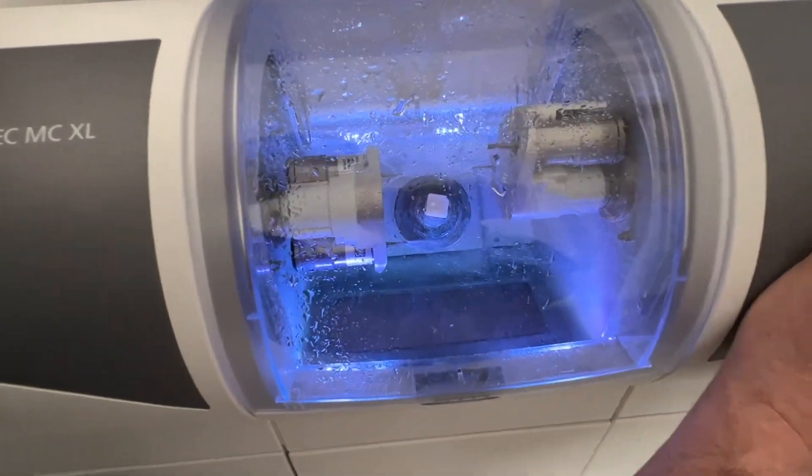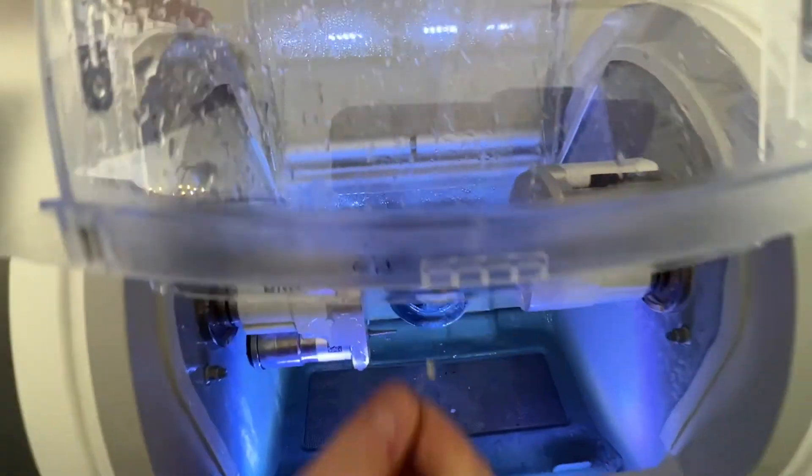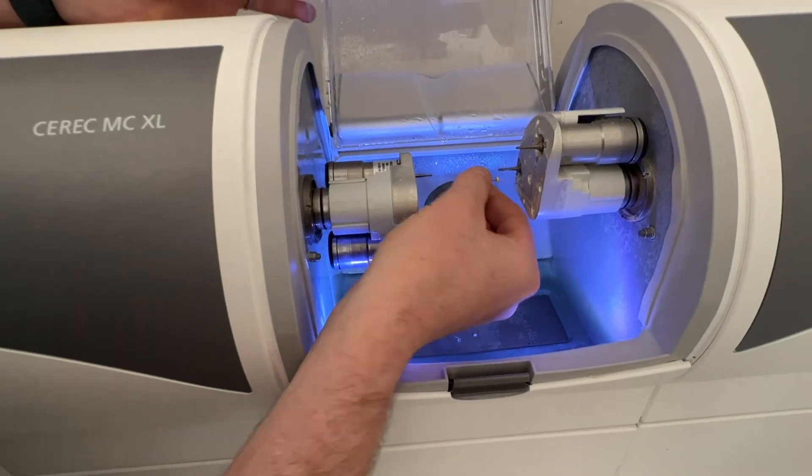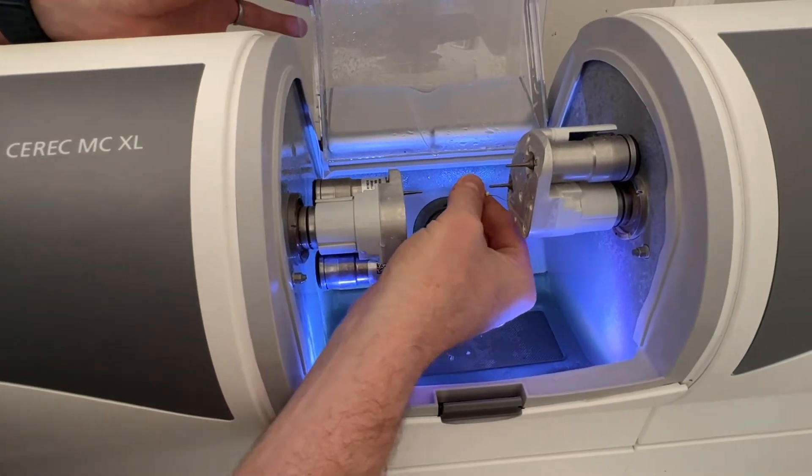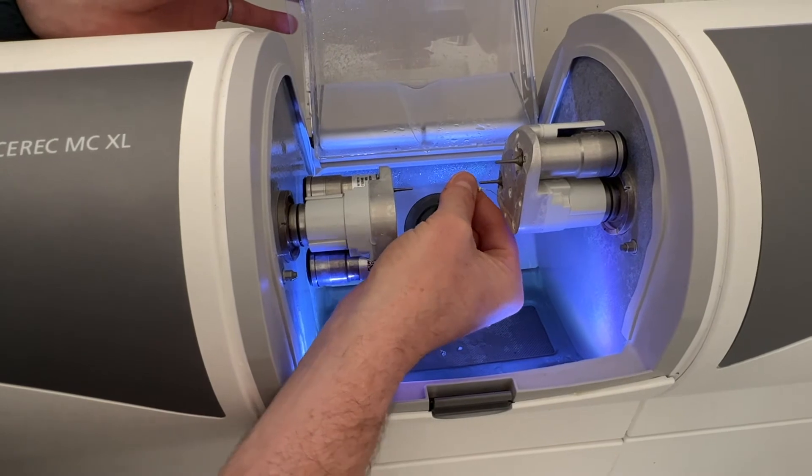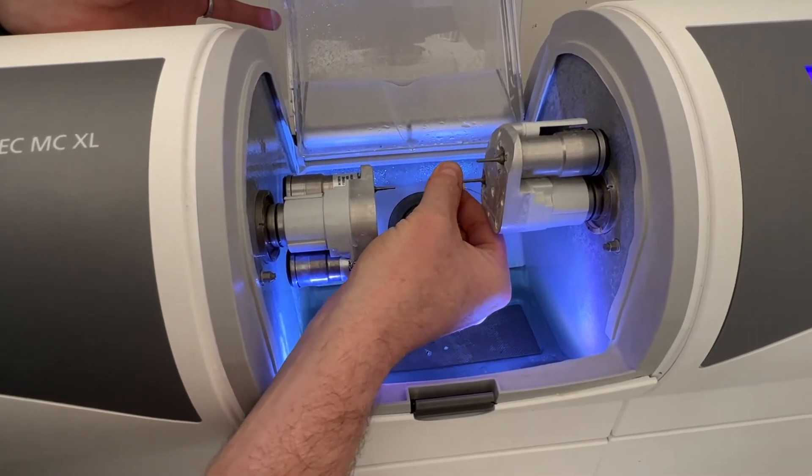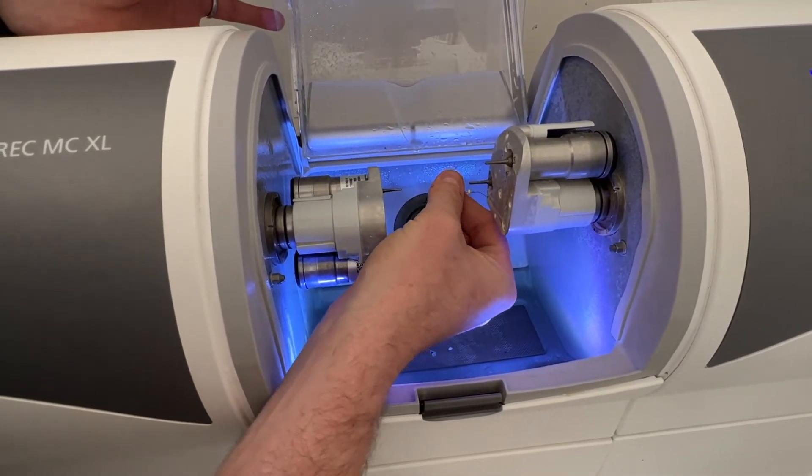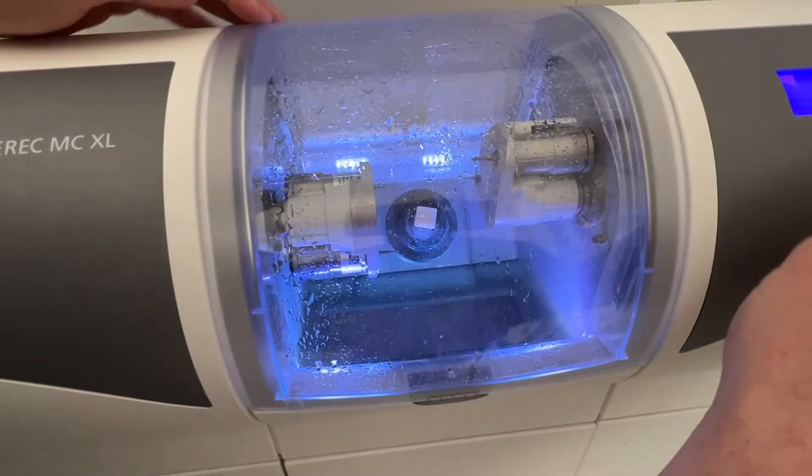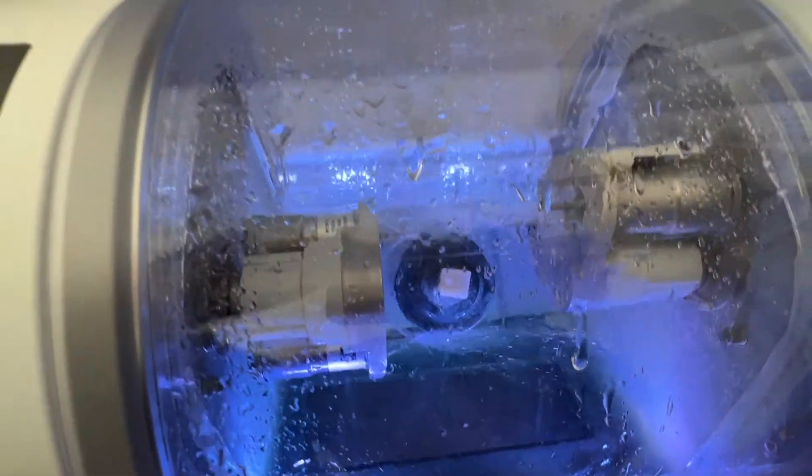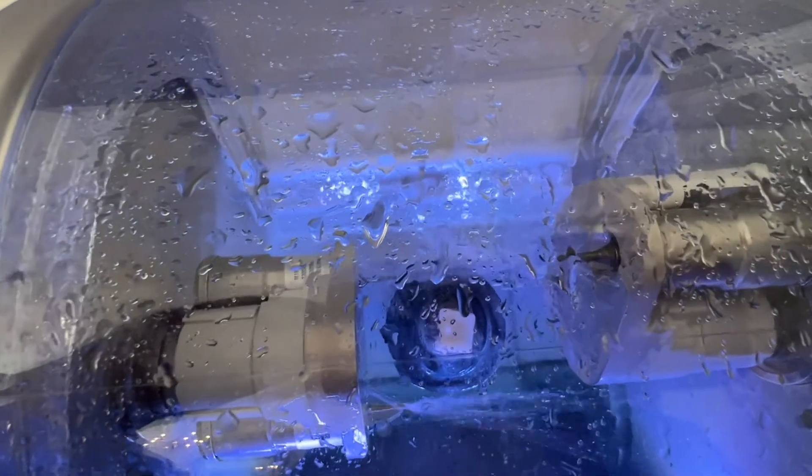Let's turn that on again, maybe just once a little tiny bit more on this one. I can just get that, I can feel that's just a little bit not quite how I want that. There we go, that's better. So now it's hitting the end of that properly and I'm happy.